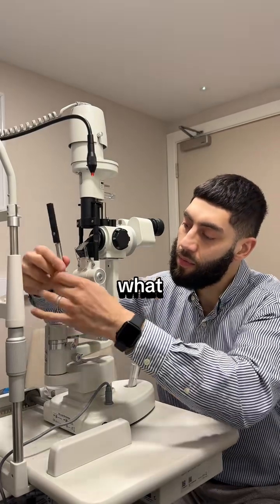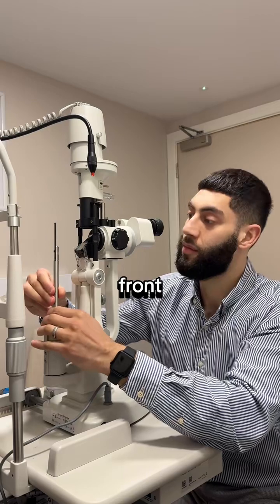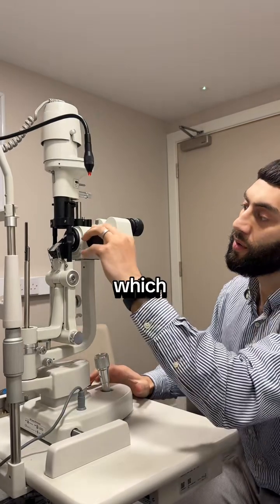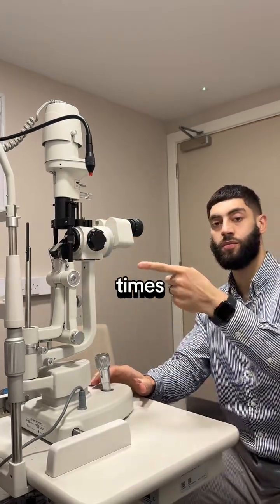You must have a focusing rod — that is what this is. Insert the focusing rod in front so that you can see it, then adjust the eyepiece so that it's aligned with your PDs. Then rack the dial up to times 40.